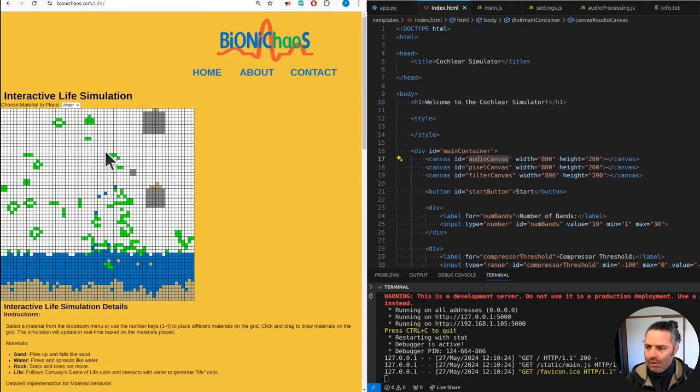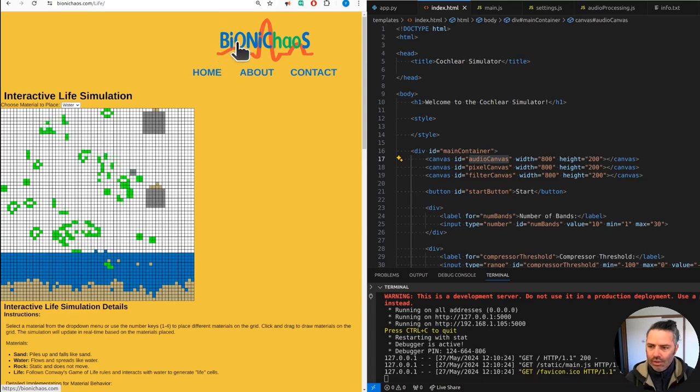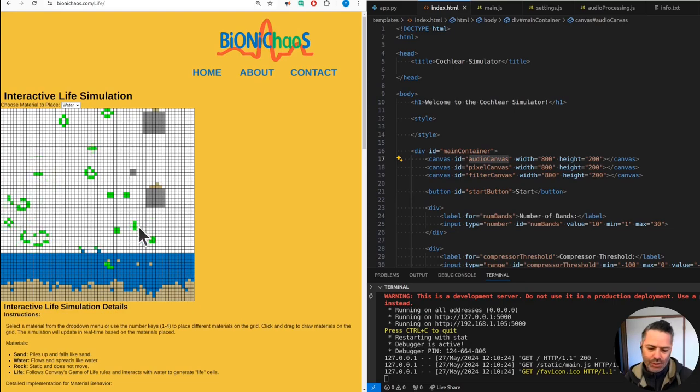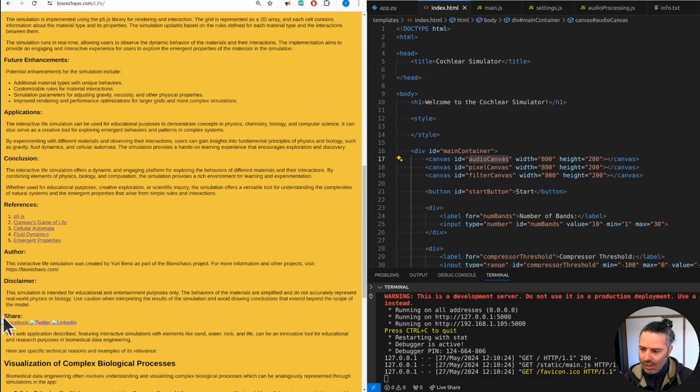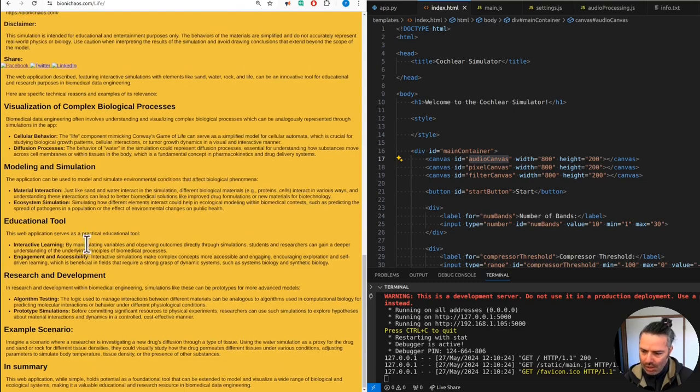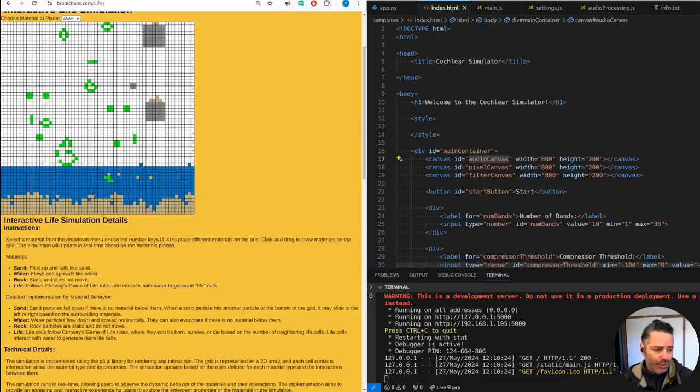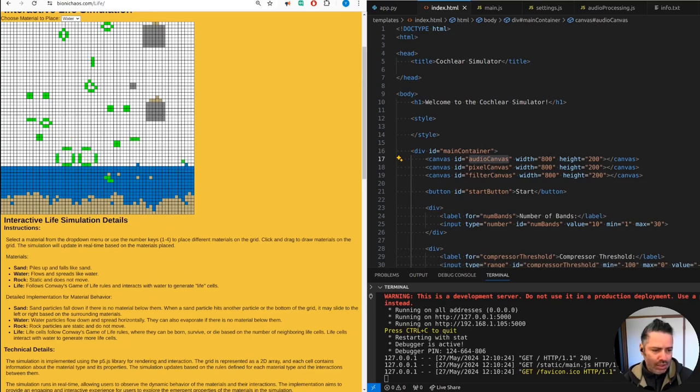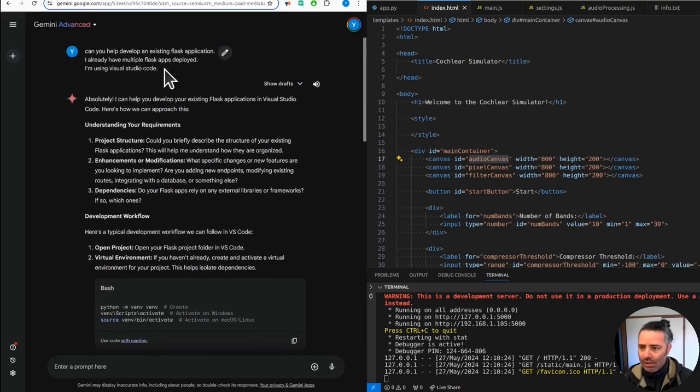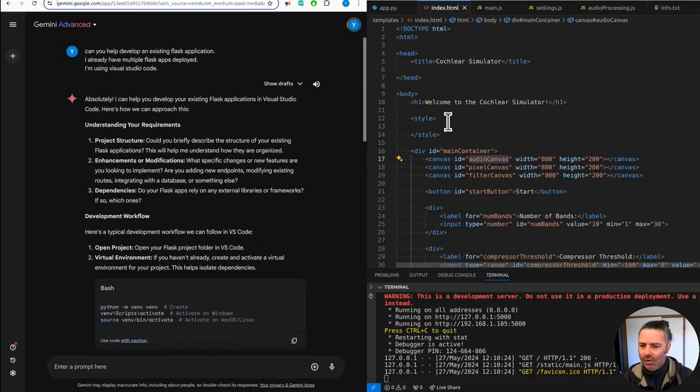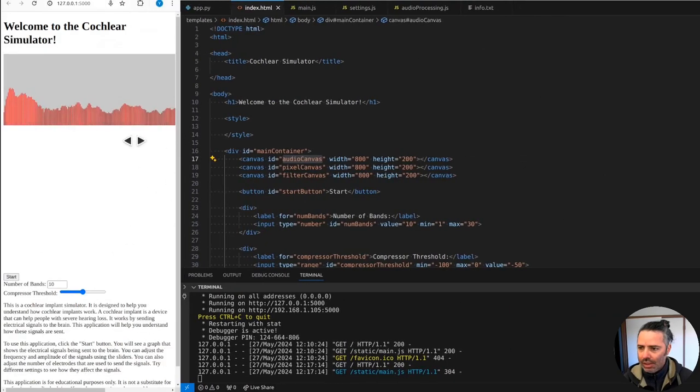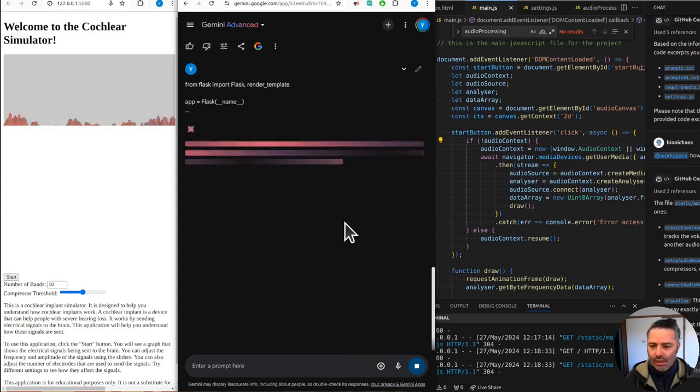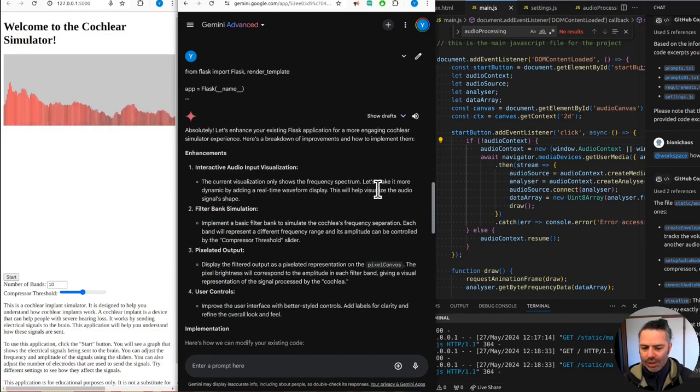Go check out the live simulator as well, it's currently live on the website. Eventually there should be some YouTube videos that will go down here. Don't forget to share on any platform of your choice. This is something we're actually developing using Gemini Advanced. This will be a new one but we already have some code for it.